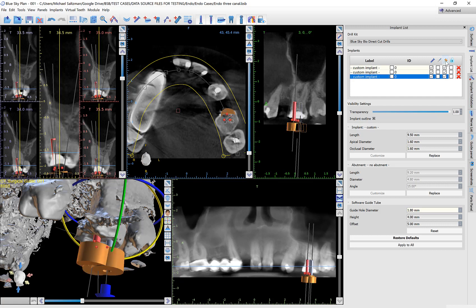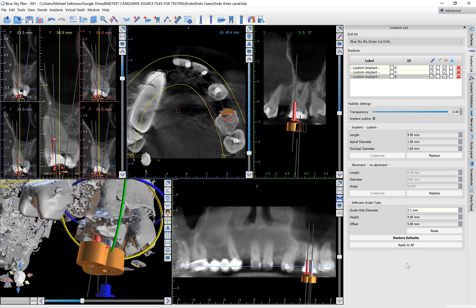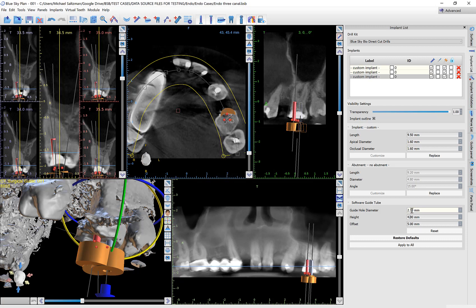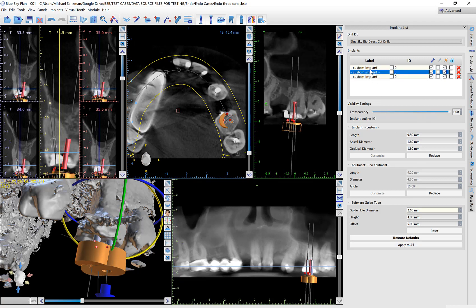We can turn on the software guide tubes here. In advanced mode we can edit the guide hole diameter. Assuming we're not using a metal cylinder and are just printing the surgical guide and drilling through it, we can set the guide hole diameter to be a tenth of a millimeter wider than the drill itself — that may vary slightly depending on the printer. The height is less relevant since we're not using a metal cylinder, so we could keep it at around four millimeters. The offset, generally eight or nine millimeters, can be kept at five since we're not using a metal cylinder. Once we have this setting for the particular implant, click Apply to All to copy these settings to the other relevant implants.